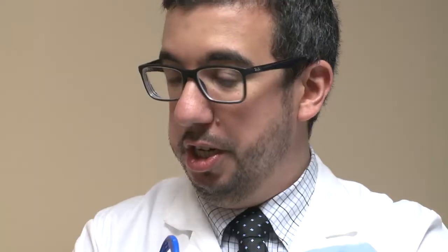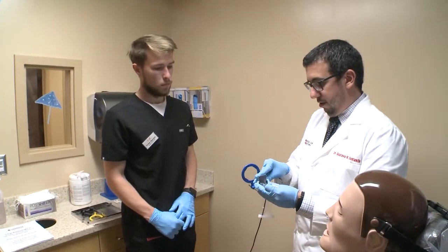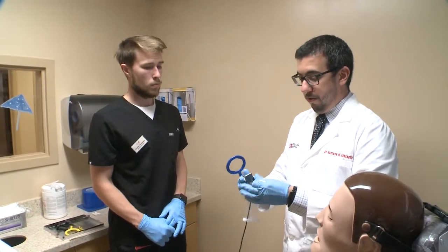We cover panoramic radiographs and even cone beam CT. Students interact with all the imaging technologies here, but more importantly the images — they do that through participation in seminars and programs where we share images through two separate PAC systems, or picture archival and communication systems.